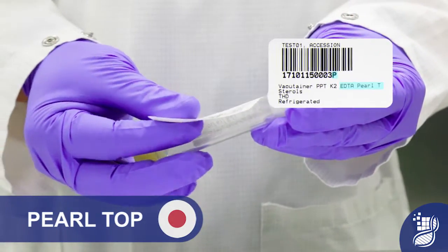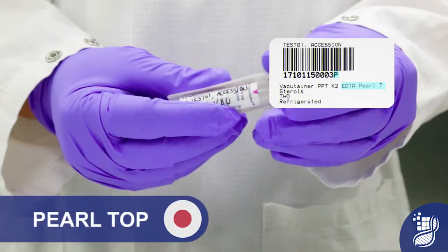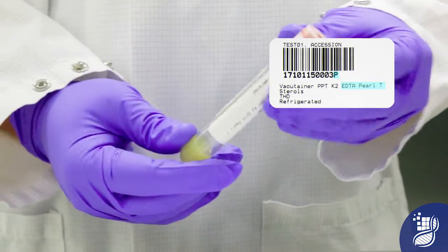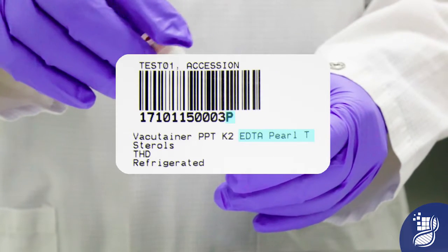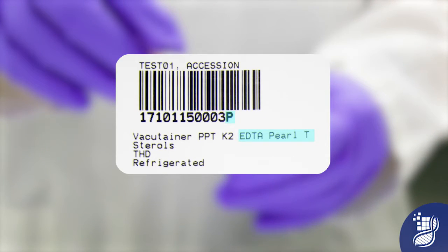EDTA Pearl Top label will be applied to the plasma tube. Notice this label has a P bump at the end of the SID that is specific to this tube. Bumps are necessary for instruments to identify the specimen types.